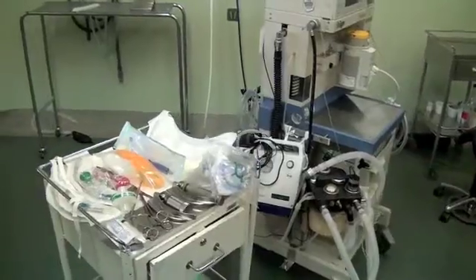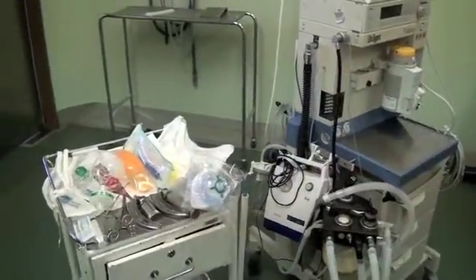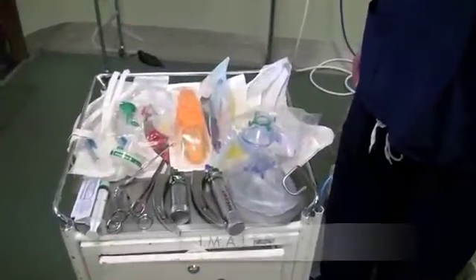In this video today we are going to be covering how to prepare an airway trolley, which is essential before providing any anesthetic. The airway trolley should be positioned in a convenient location during a general anesthetic, and during a regional technique it must be easily accessible should a complication occur. This is how the airway trolley is laid out.